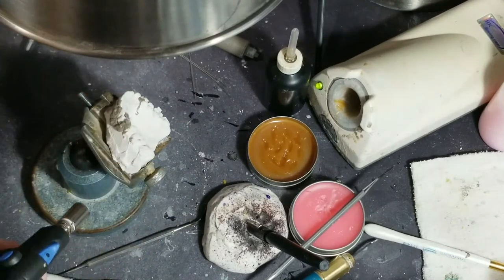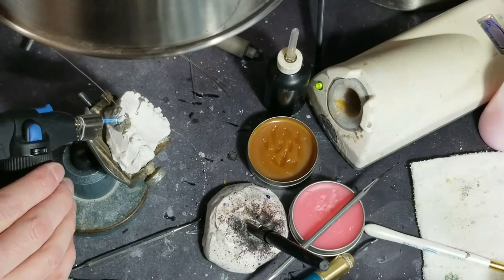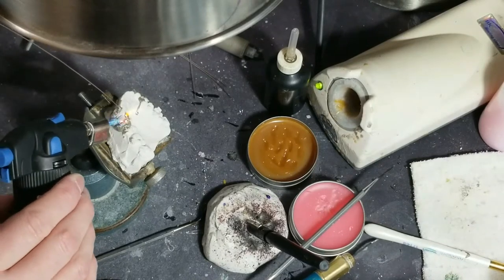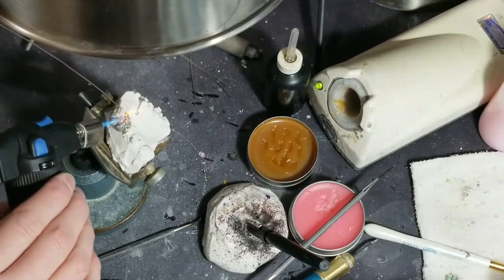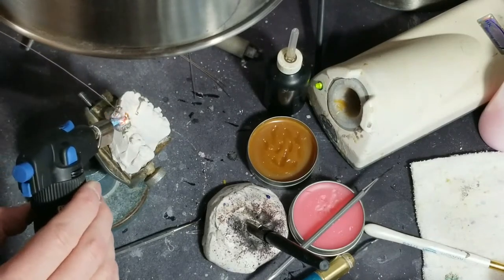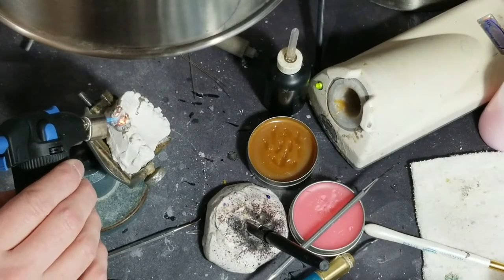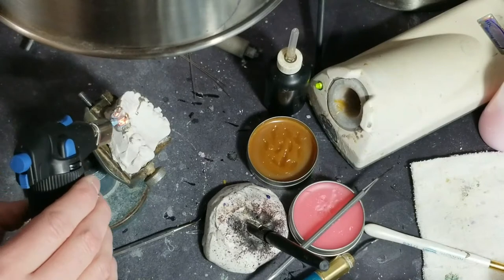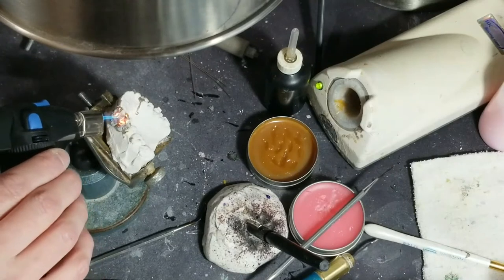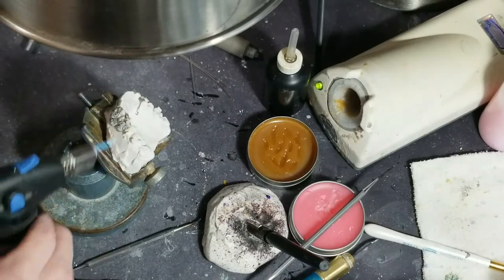The other side. I'll use the solder to kind of get the flux to go where I want it to go. It's not like welding — it's officially called brazing I believe. Mini welding. So I'm not actually attaching the two wires together — I'm surrounding them with another, a third metal. And there we go. You see how when it gets shiny I know it's got surrounded and underneath the wire.